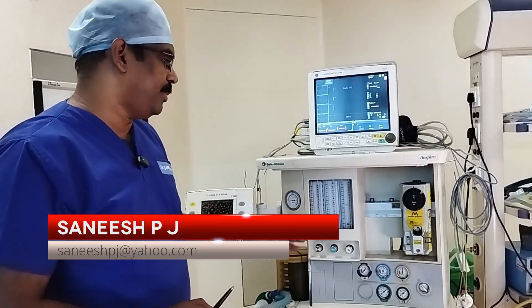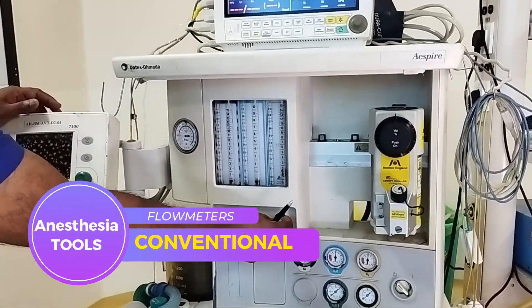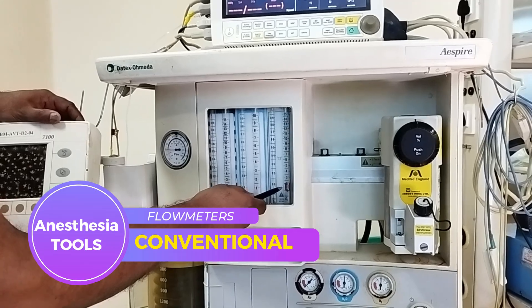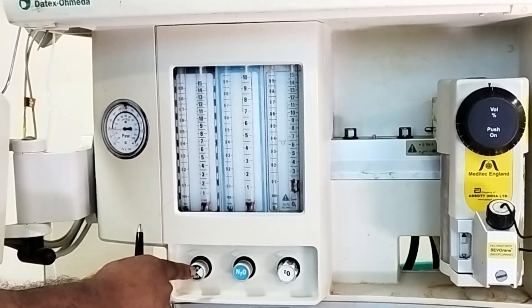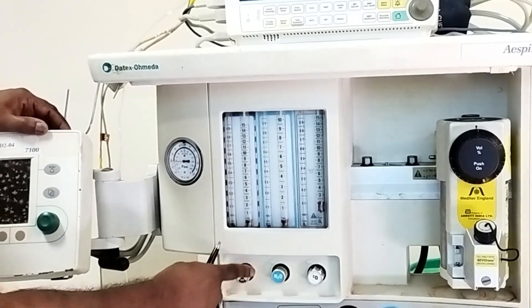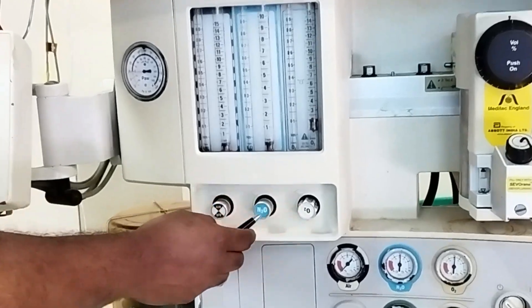Now we discuss the conventional flow meters. These are the conventional flow meters because you can see the flow control knobs controlling the gas flow. As you open the flow control knobs, the flow is registered and you read the gas flow from the bobbin location in the side tube. Different gases have different flow control knobs and corresponding flow meter tubes, and these flow control knobs can be identified by their chemical name written on them.